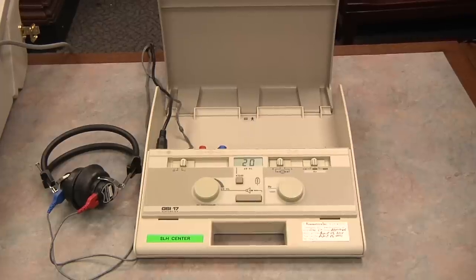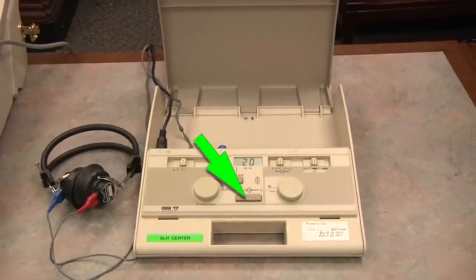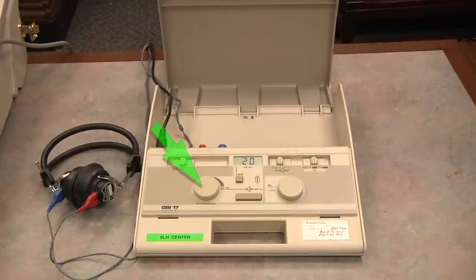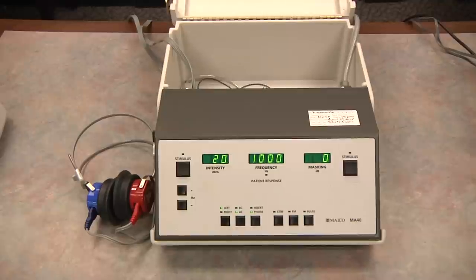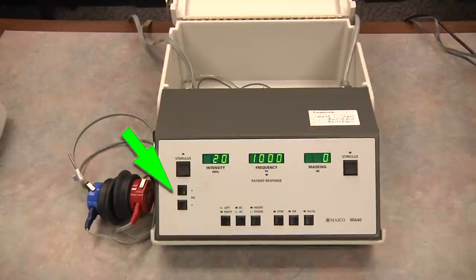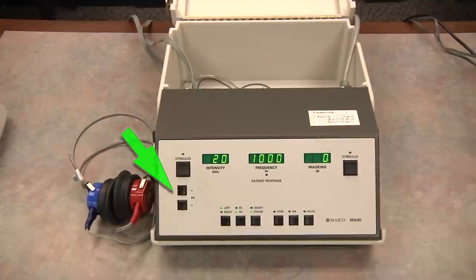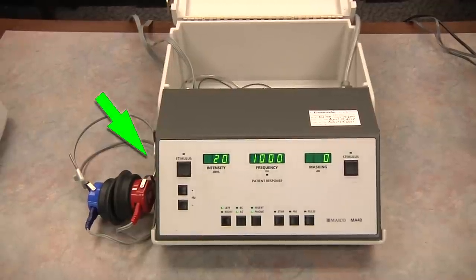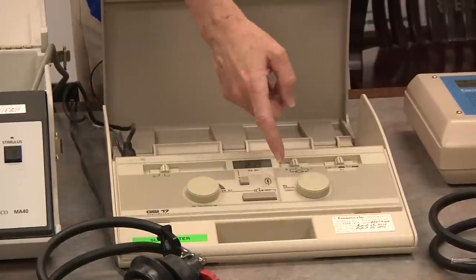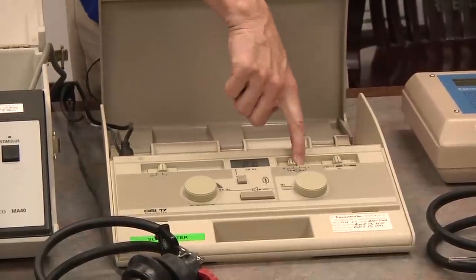There are many different styles of portable audiometer, but they all include the same basic features. On this audiometer, the tone button is here, the frequency dial is here, and the intensity dial is here. On some audiometers, you may need to select right and left with a toggle switch.